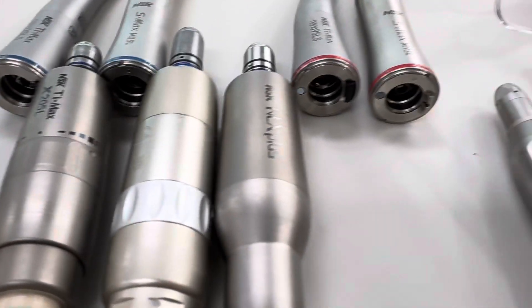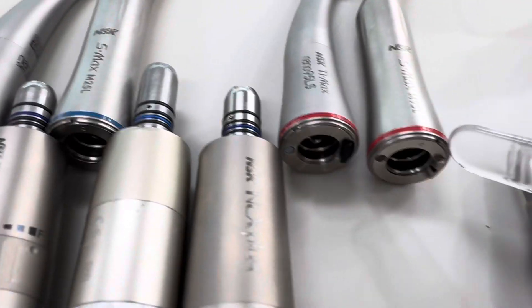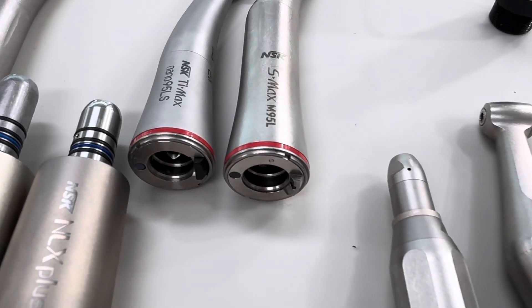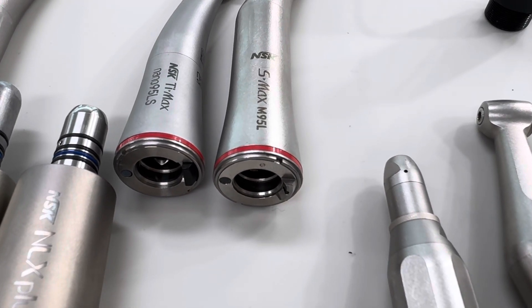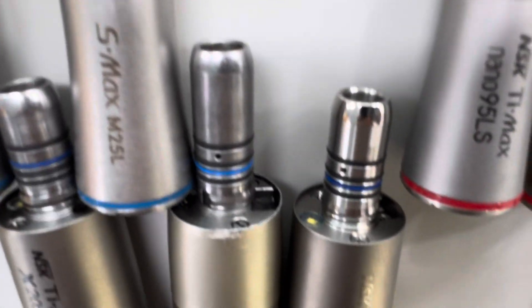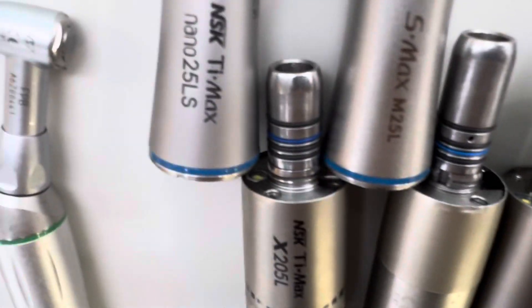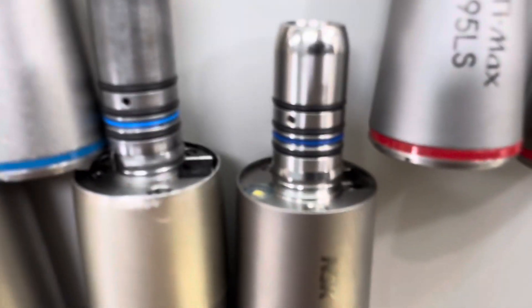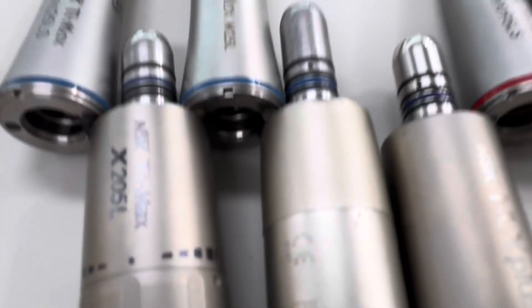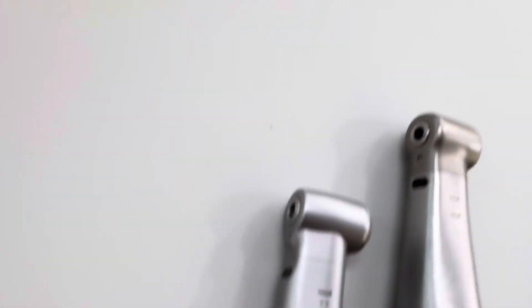The reason is — have a look on here — we've got this little dimple on the bottom of the handpiece. Sometimes that's retractable, but a lot of the time it's a fixed metal dimple, and that little dimple on the handpiece slots into a shaft on the motor, and it lines up the optics on the other side. Like a little LED optics in this case, and that shines up a fiber optic shaft and brings our optics out the end here.